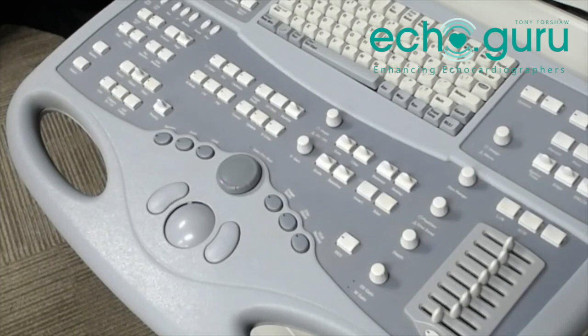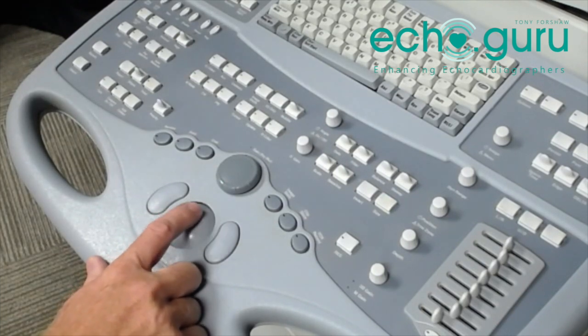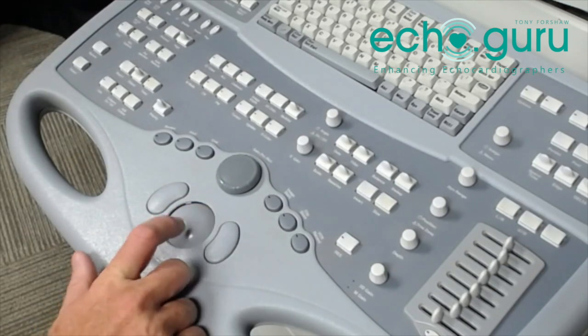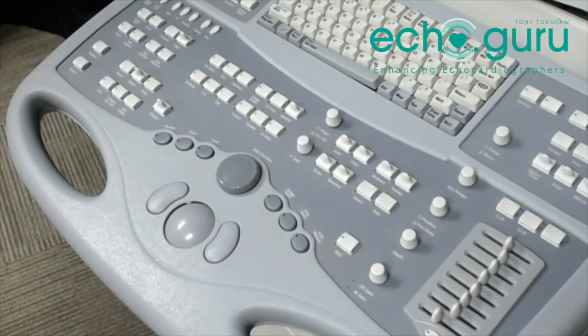The final thing I'm going to focus on is the rollerball or trackball. The trackball is a ball which enables spinning in any direction and that moves our cursor on the screen. They get a build-up of dust, gel, oils, and all sorts of things, which can dirty the ball and make it difficult to move, or can actually stop it from working at all.